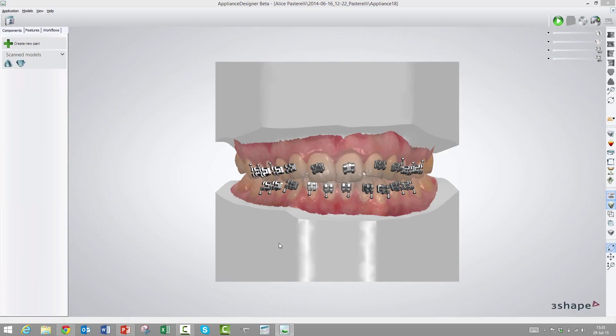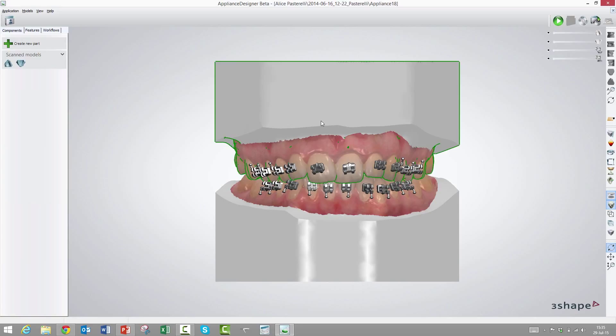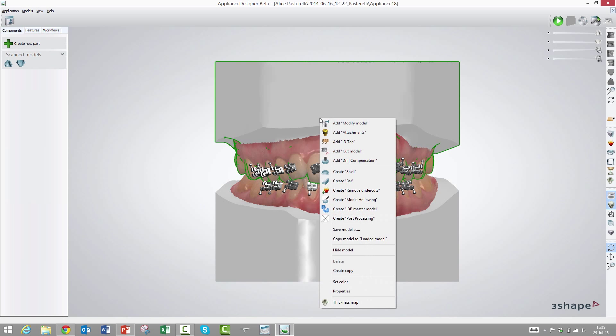We need to make some transfer media and start with the basic stuff as used today in indirect bonding. We generate a model where you vacuum compress on top of it. Right-click and choose indirect bonding master model.